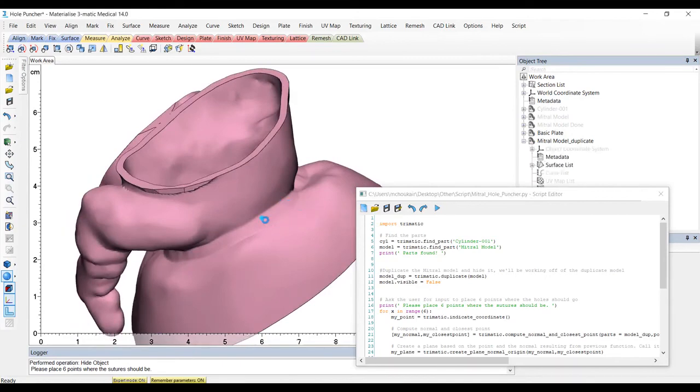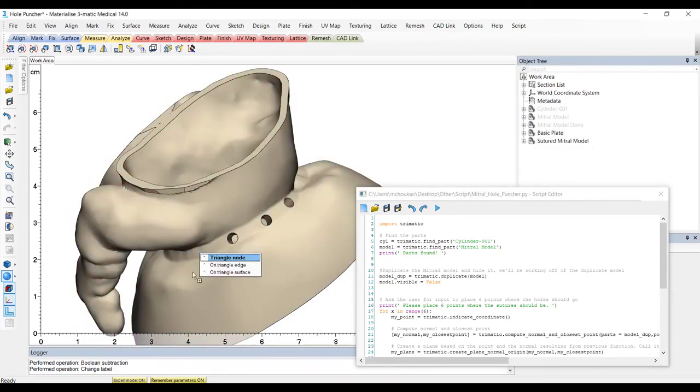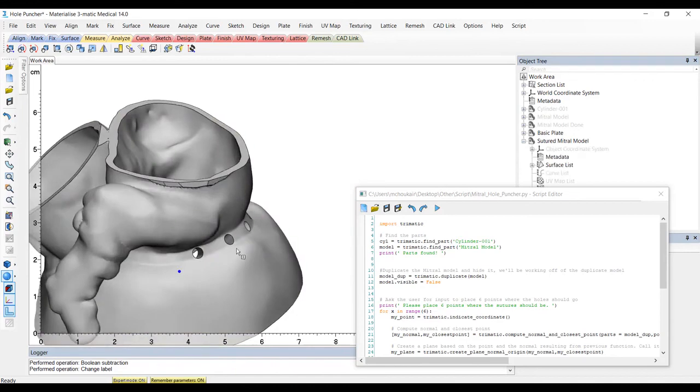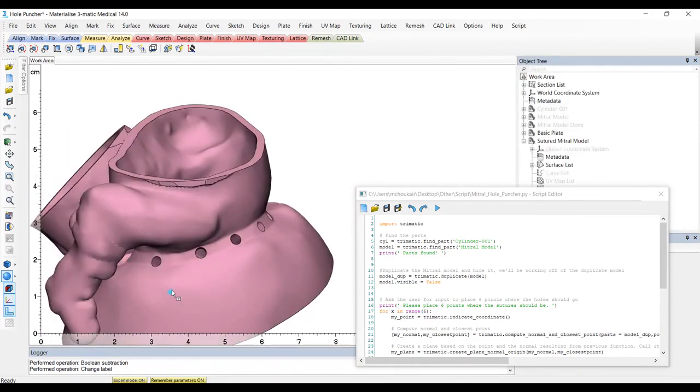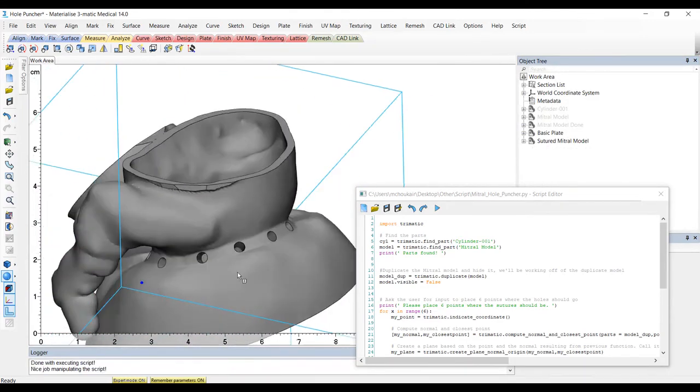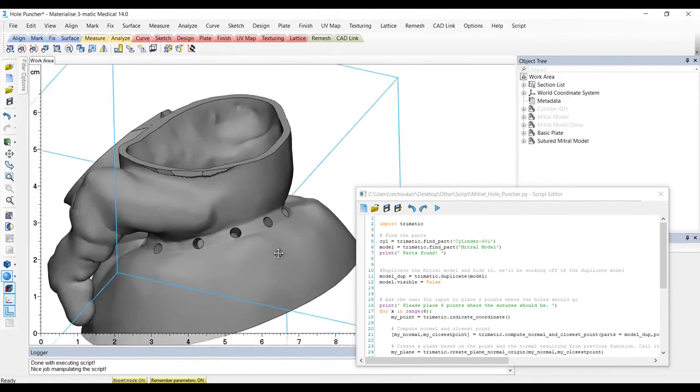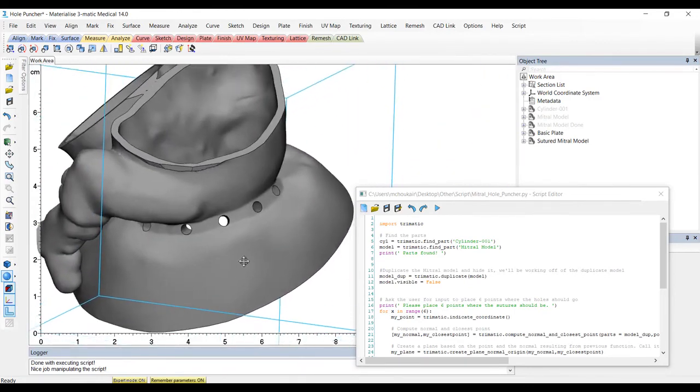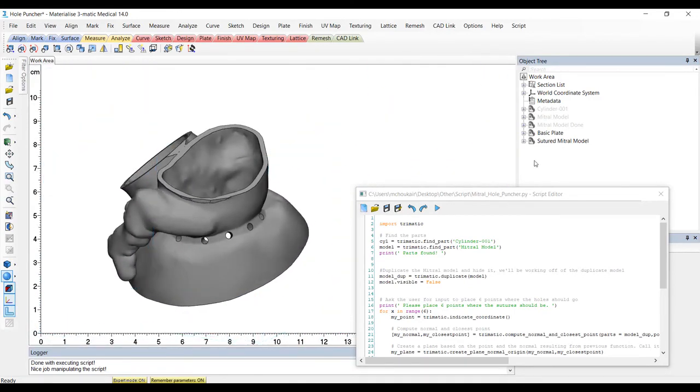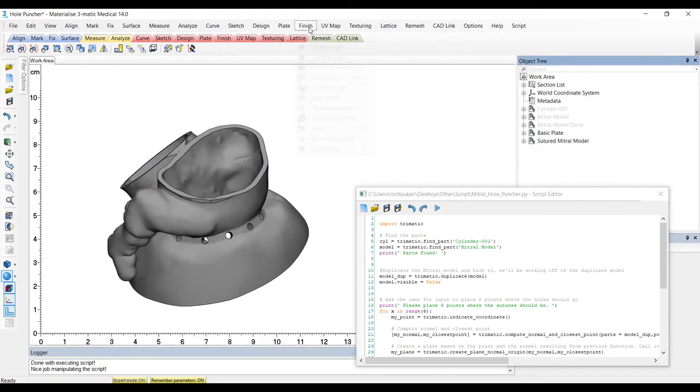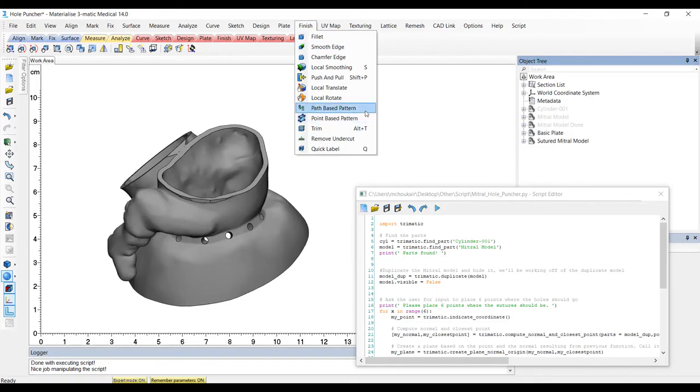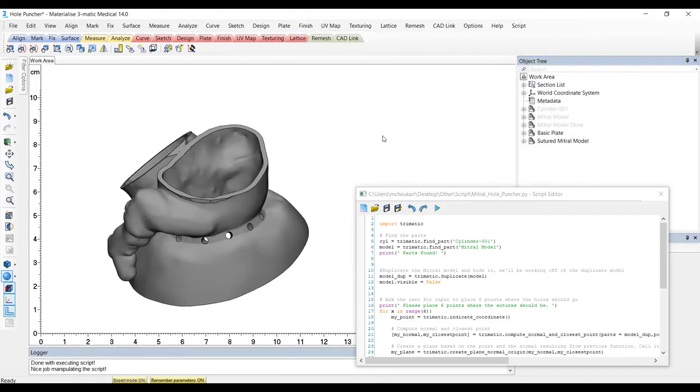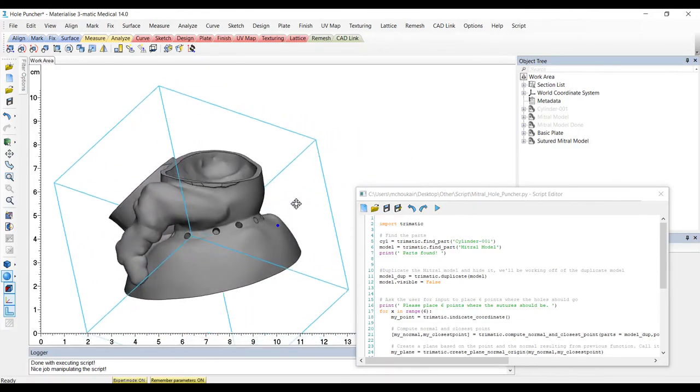Make sure to keep your eye on that logger to check for any error messages or for your print messages telling you you're all set. And ta-da! Here's our model and we still have our original as you can see here. Of course, there are other ways to pattern along a curve and other ways to make those holes. So I will leave that part up to you if you'd like to change the script to all run automatically rather than ask for your input on points.